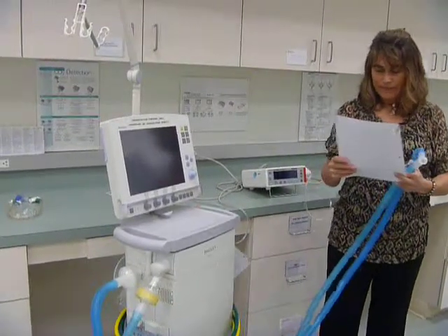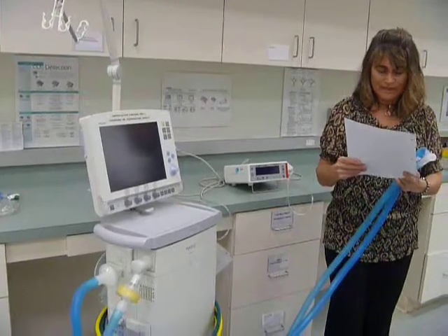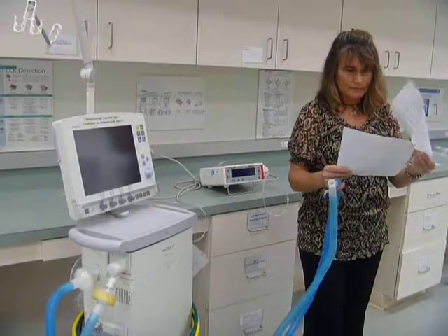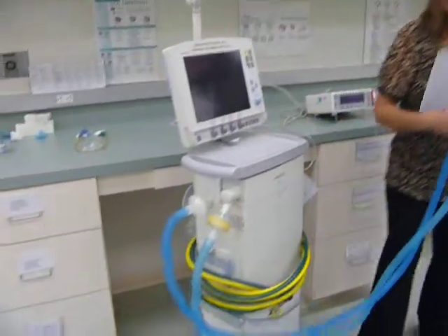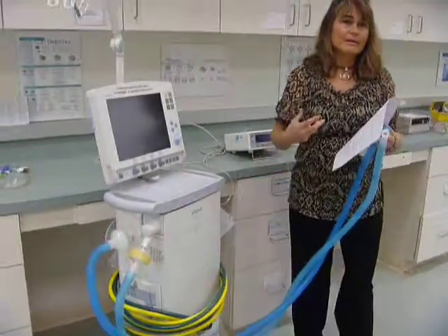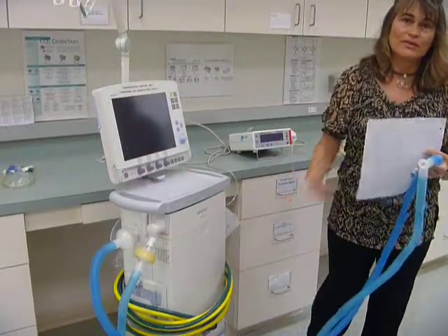Expiratory water trap and expiratory filter. The purpose of the expiratory water trap and filter is to collect condensate and other liquids. This will help to prevent the exhalation valve assembly from getting moisture on it. Moisture can interfere with the accuracy of the measurement of the exhaled air. All right, so I didn't add a water trap, but on the other ventilators, we're going to see how they have a water trap on it. So the moisture from the patient's exhaled breath, if it gets inside, interferes with accurate readings for pressure and flow and volume. So that's why we don't want to get a lot of water or moisture inside the ventilator.